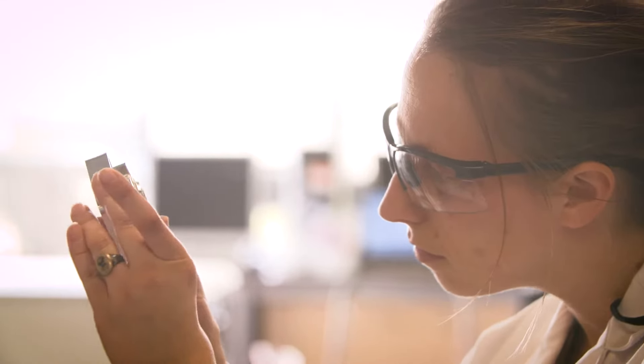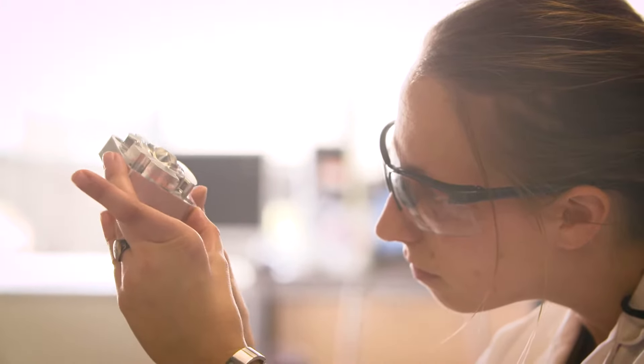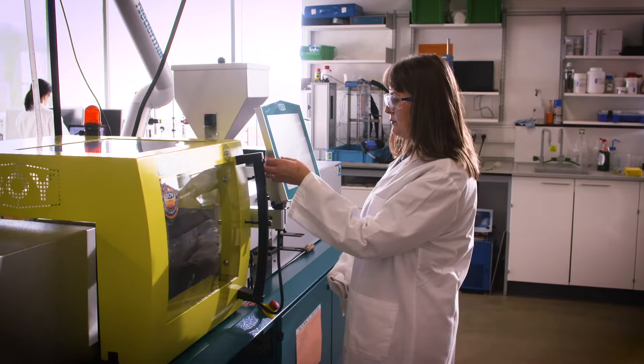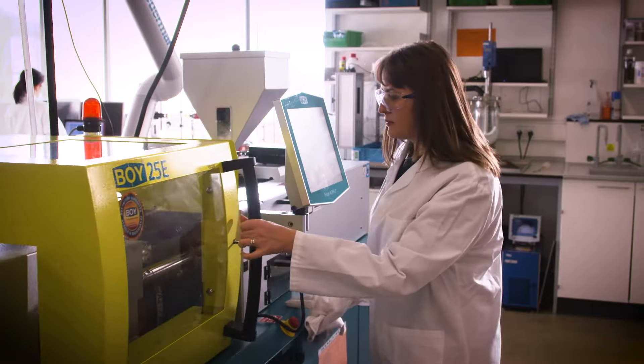For the design process of a polymeric aortic valve, we're designing the geometry of the valve on the computer to predict its lifetime through modeling, and then we come down to manufacturing it by injection molding it using a microstructure polymer.